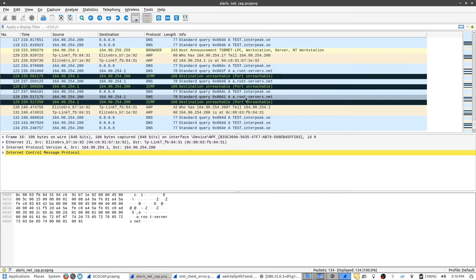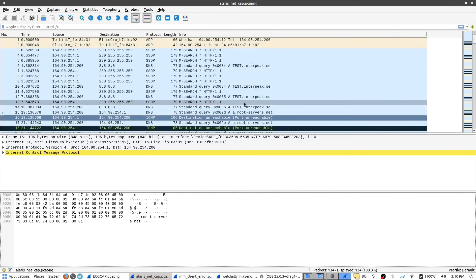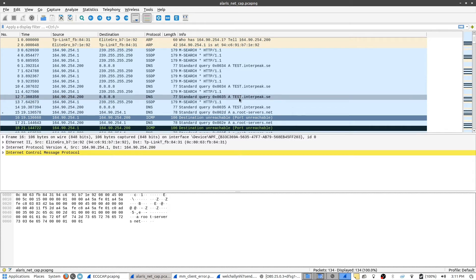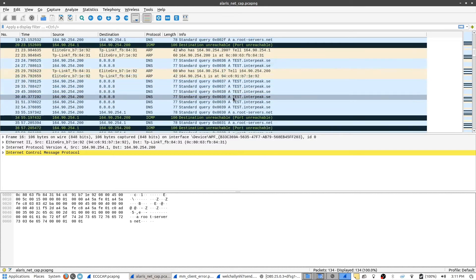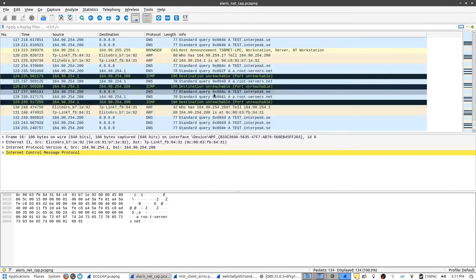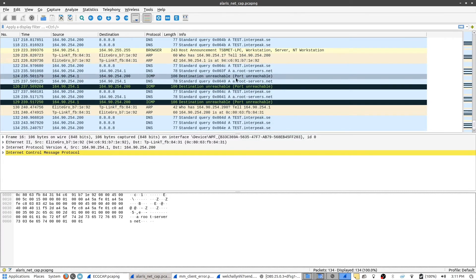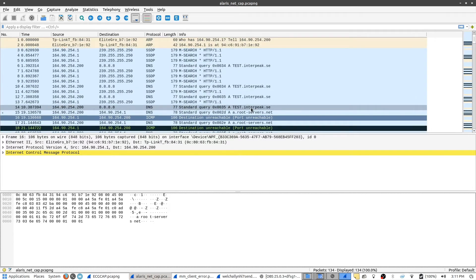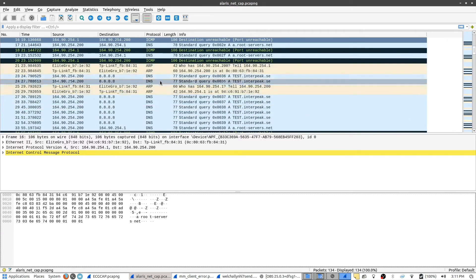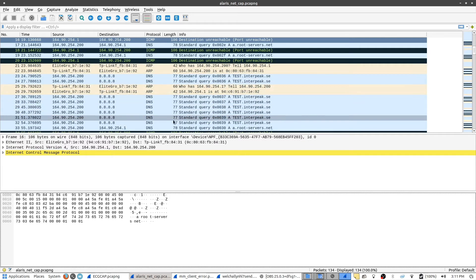Probably what it's doing is looking for its home server to check for updates, or there are other reasons it could try to reach out like that. But at this particular time, the access point it was connected to did not have internet access. So these packets essentially went nowhere, which is why it keeps trying to do the same thing over and over without success. This gives you an idea of what it might look like when a device is not able to reach what it wants — you'll have the same DNS request over and over.